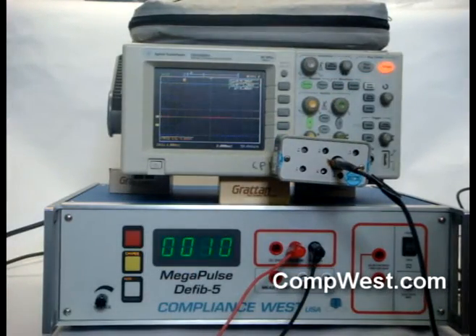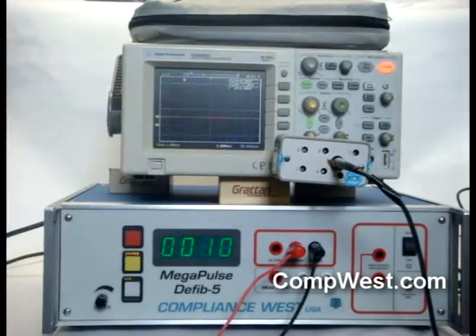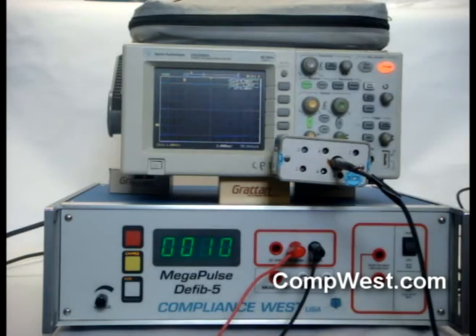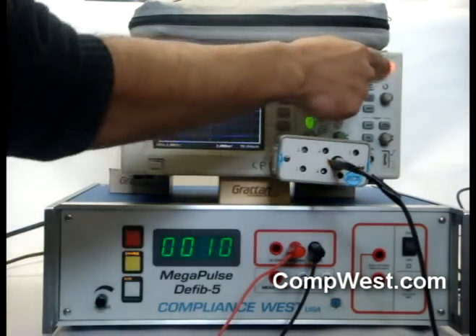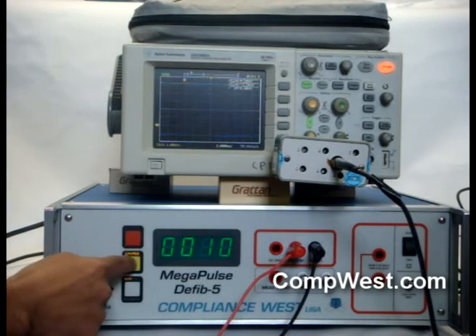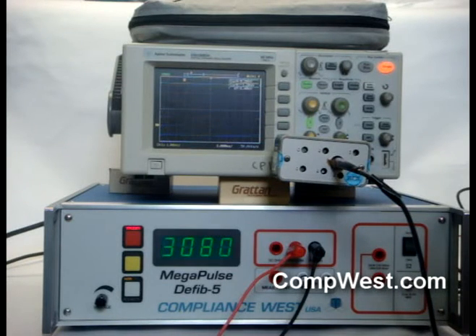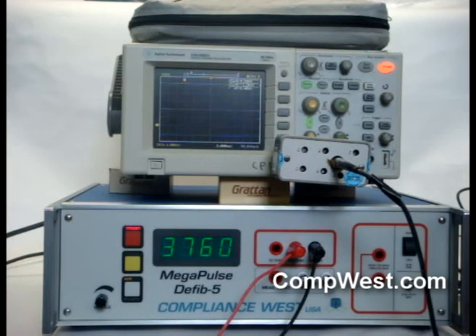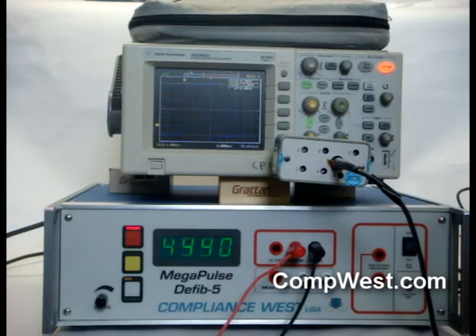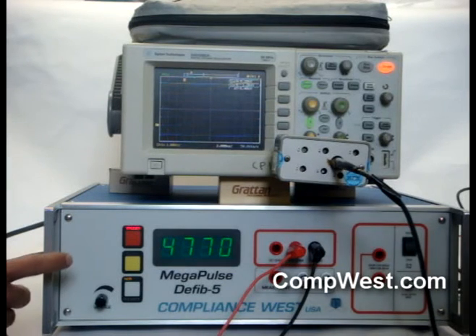Then set up the scope so it will capture a single waveform. In the case of the DSO3062A, the single button is pressed. Press charge on the Megapulse Defib 5 and wait until the input voltage shown on the front panel display is 5000 volts. Press trigger when the front panel display shows 5000 volts.